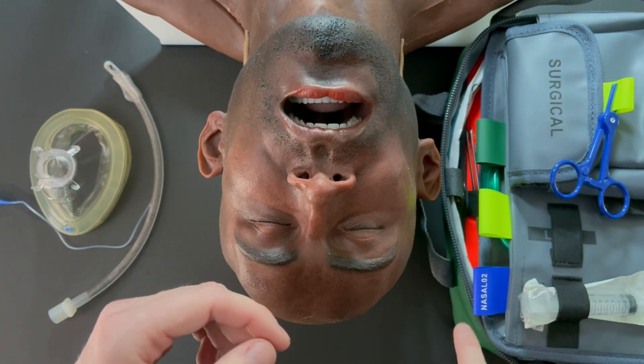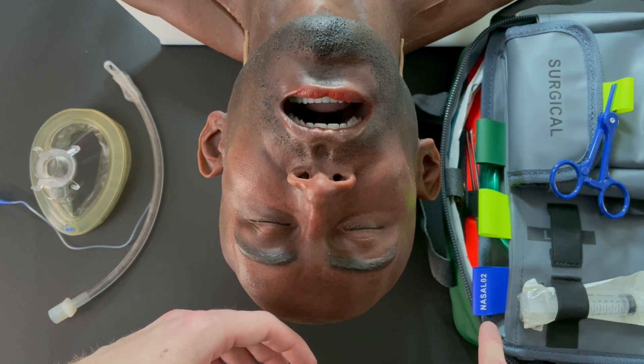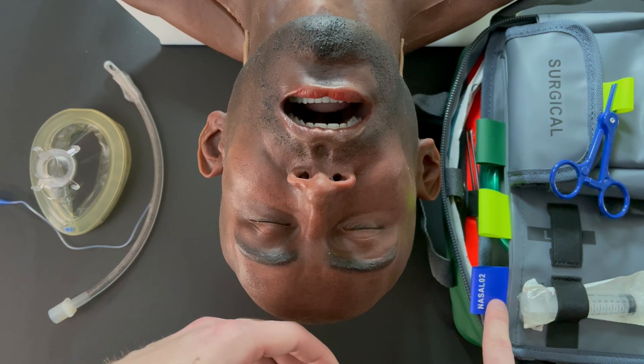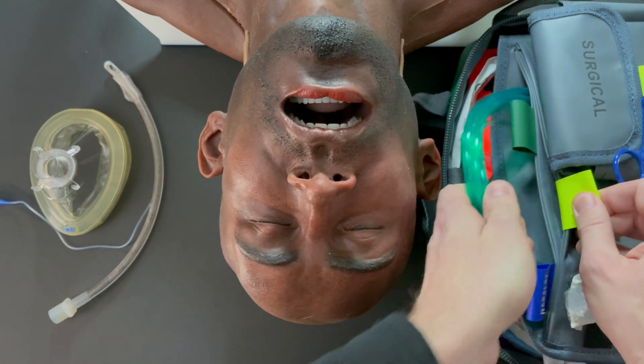You'll see this reflected in equipment now. Here's the Scram Tactical bag — it even has an apneic oxygenation tab for nasal O2 built right in.